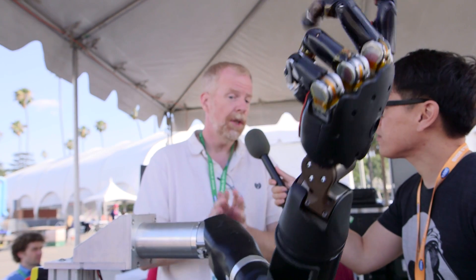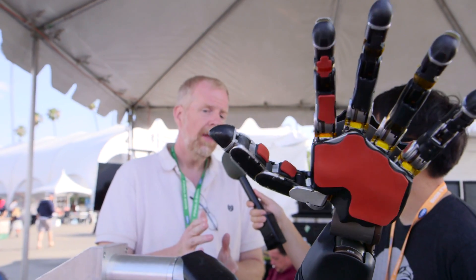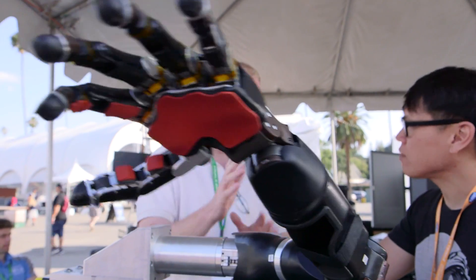Well, this is designed to be exactly what you mentioned — to look like a human arm — because it was designed to be a prosthetic limb. It was really designed to replace the human hand. To do that we had to build a robot system that had the same strength as a human. So it can curl 45 pounds and do a pinch grip of 20 pounds. It has really human-like strength.